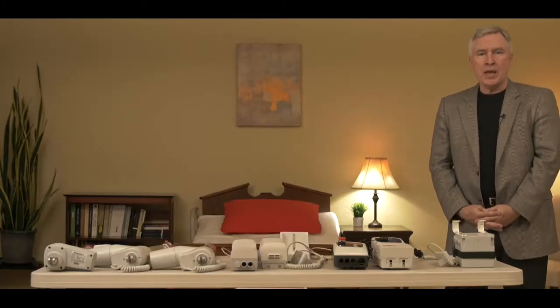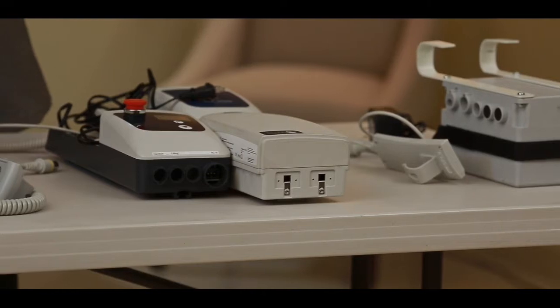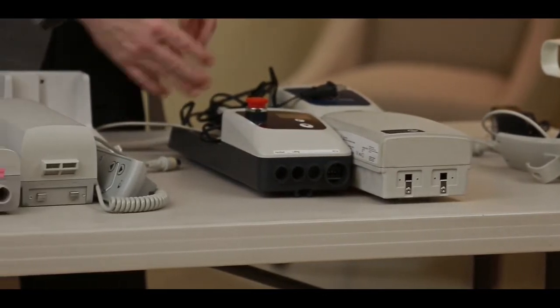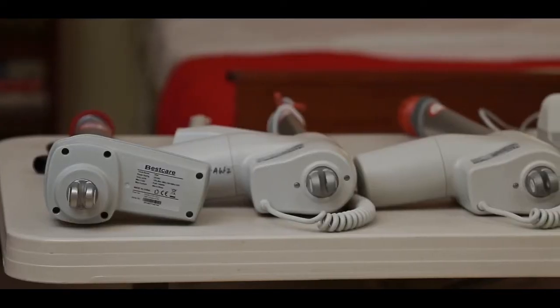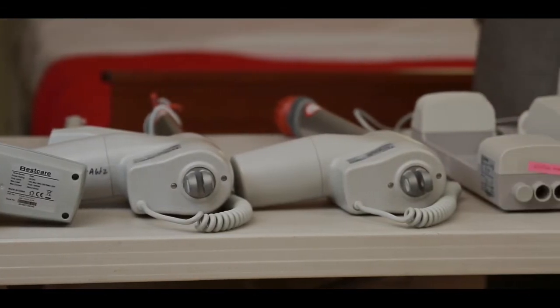So what I'm going to be describing today are three styles of electronics that mount on your patient lift and four styles of actuator motors that mount on your patient lift.